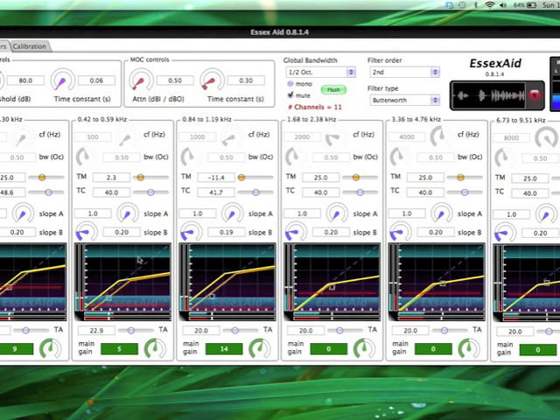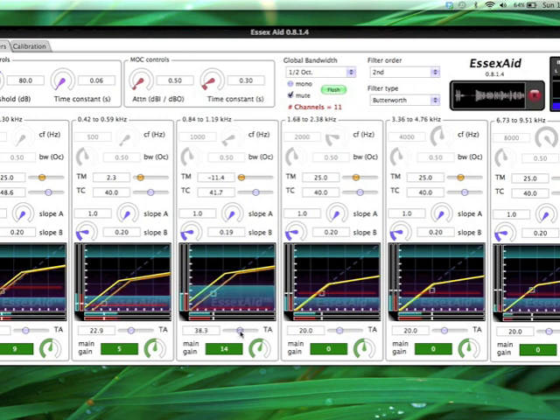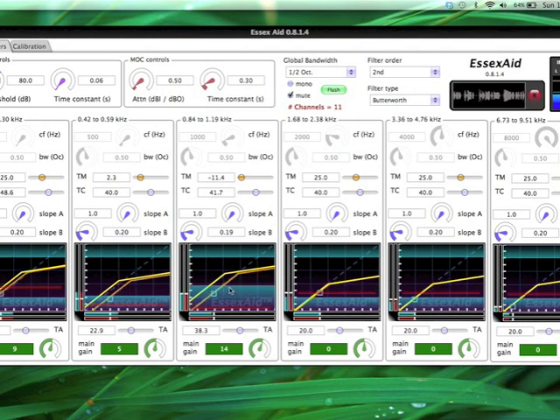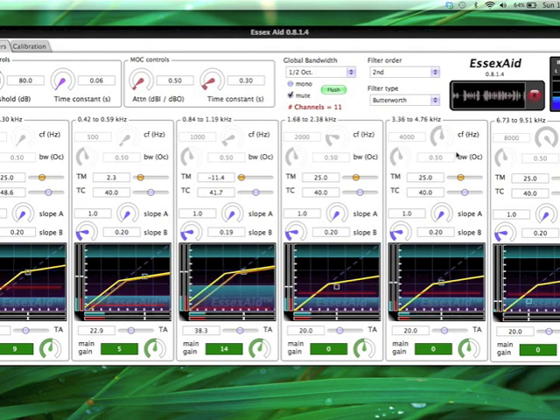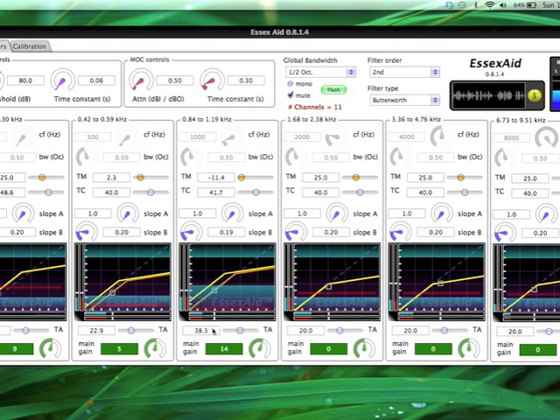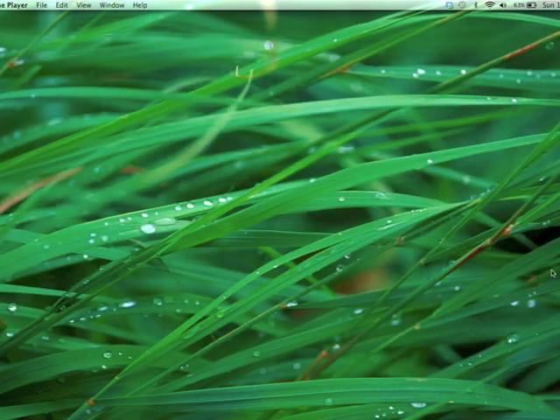There are also some other tools for the audiologist. The green shaded region can be set to the listener's threshold — the range of each axis is 100 dB. So if you know the listener can't hear anything below, say, 40 dB in this channel, you can set this visual marker, and when you're adjusting parameters and presenting a stimulus, if the box is below this line, you know the listener wouldn't be able to hear it at all. Sadly, I can't just let you hear it now because we'd get screaming feedback, but fortunately there is some direct-to-disc recording built straight into this application. So if I hit the record button, I can just carry on talking, and do something obvious like change the gain up massively and bring it back down, and when we listen back to the recording, you'll hear this.